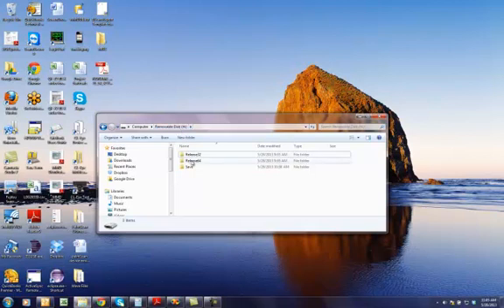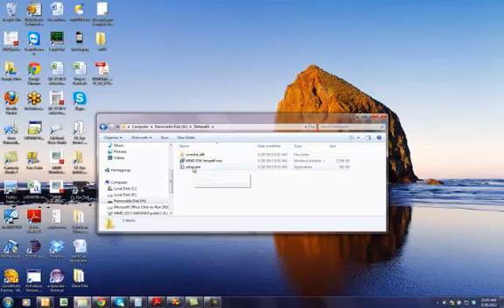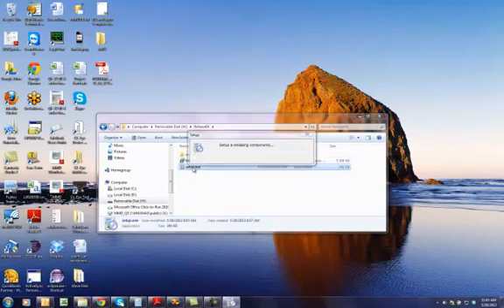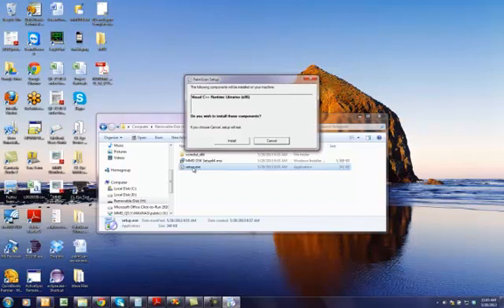And go to the Release 64 and double-click on the Setup.exe. And you want to do this before plugging in the USB Mobile B-Scan into your system. So all of this stuff has to be done prior to plugging in the USB connection.